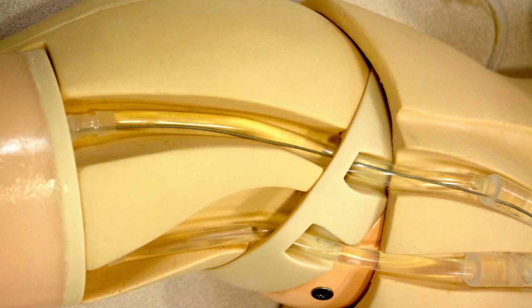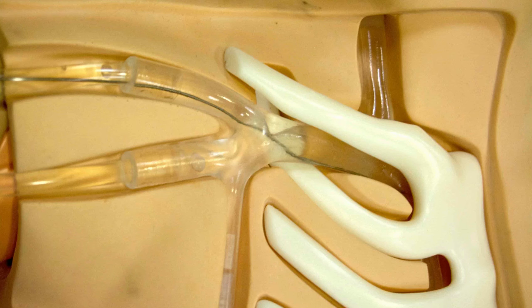You can see the blood vessel leaving the insert with the articulation there, coursing through the arm articulations and up into the shoulder. Advancing a straight tip wire through that area, you can see that it flows pretty smoothly. The wire crosses that insert without a problem, crosses through the articulations and into the next joint of the tubing. It then crosses into the brachiocephalic vein and down into the SVC analog. You can also note that the wire could go up into the IJ if there's a problem, simulating some dysfunction and the ability to correct problems later on in the phantom.